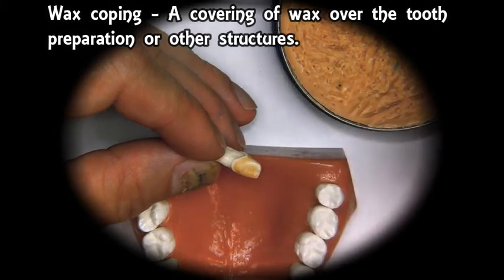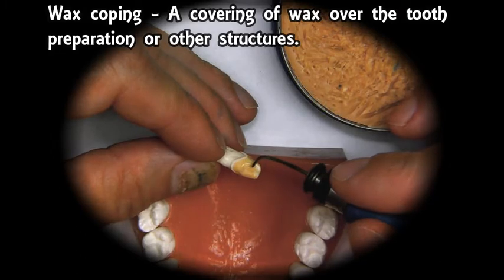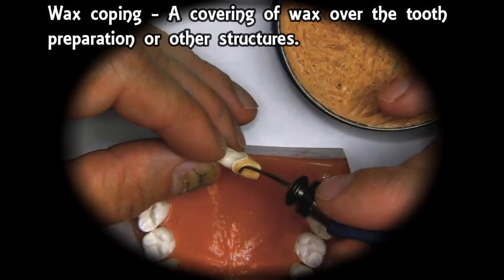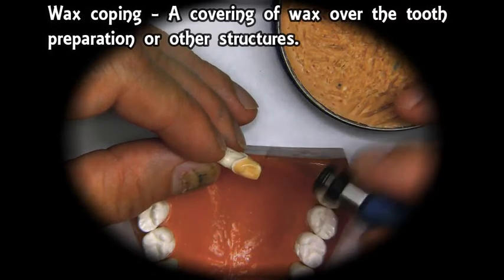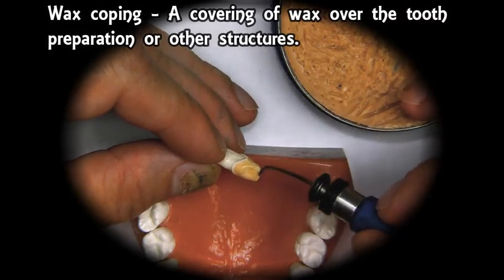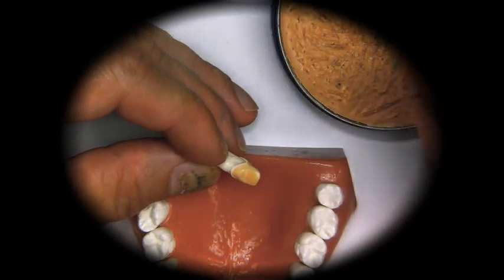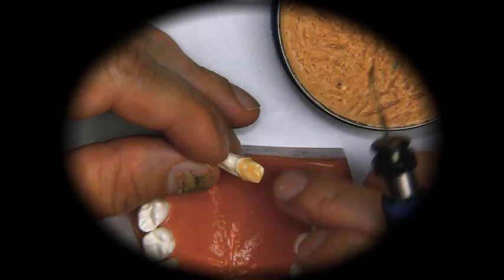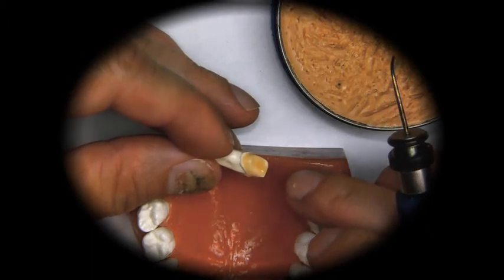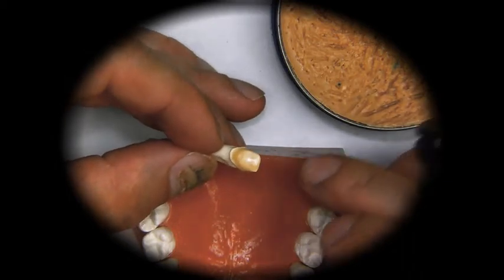Make sure that you don't heat up the wax too much, because if you do, it's just going to flow off those angles and it will become thin again. So we want to control the heat. Once we see the wax turn matte, or not shiny, then we know it's starting to cool.